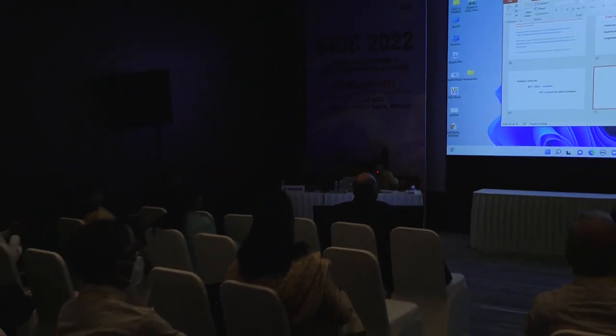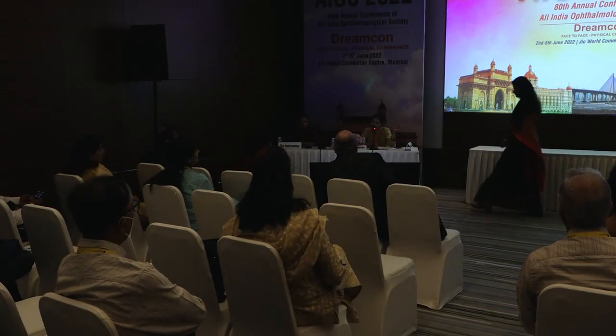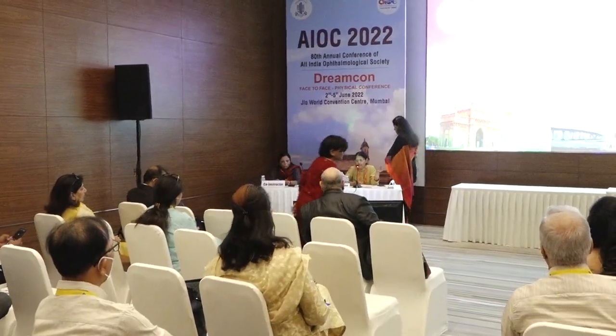Thank you, Purvi. Now we have Dr. Mehta here. Believe me, for the beginner, identifying the landmarks is so difficult. First, you have to identify the scleral spur, and it is more difficult with the UBM compared to the anterior segment imaging. So Dr. Mehta is going to teach us how to identify various landmarks using the imaging. Mehta, please. Yeah, it's loading.